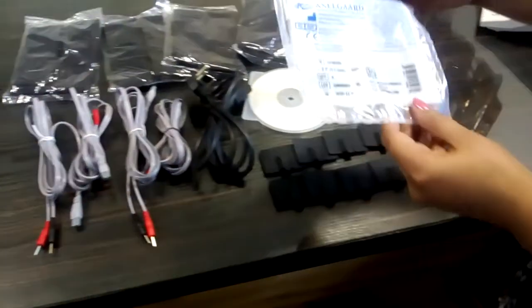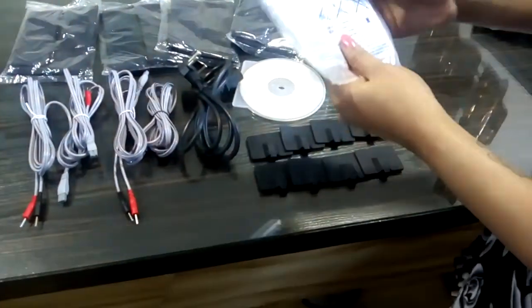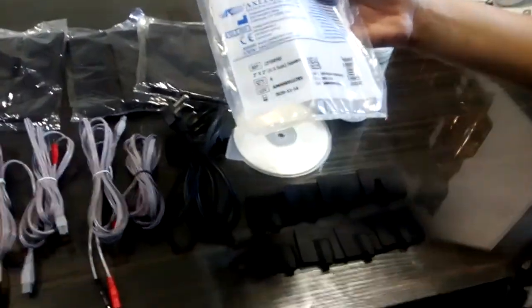These are the self-adhesive electrodes which do not come under standard accessories.